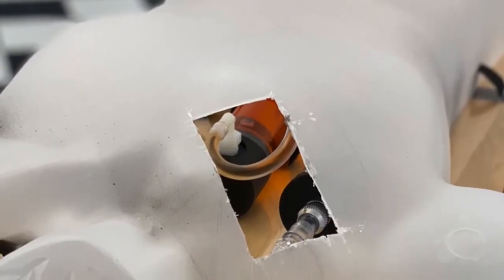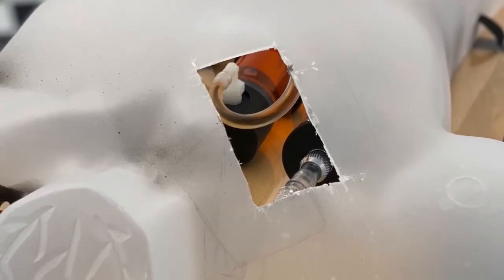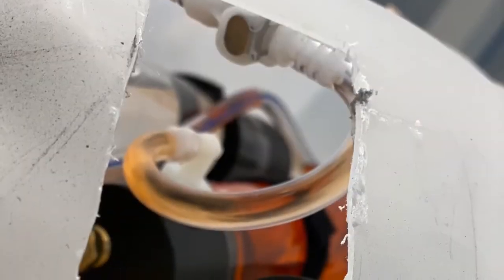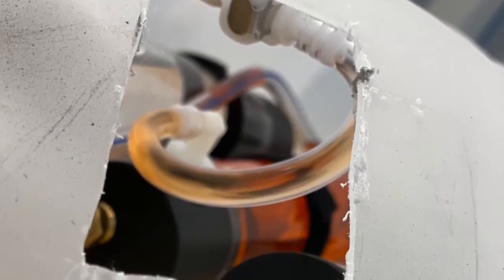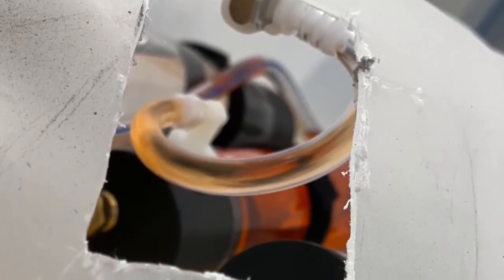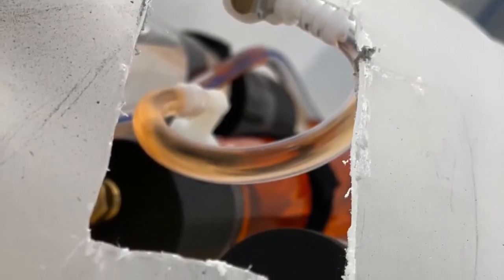All tested and primed, that's when the top portions can be added. As you can see, those notches I mentioned earlier are now coming into play, using the Velcro to secure the two encapsulation pieces together. This is also a great chance to peek inside to make sure the reservoirs and lines are all tucked in and nothing has been pinched by the top torso's introduction.